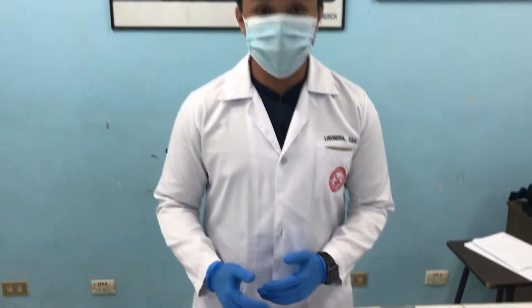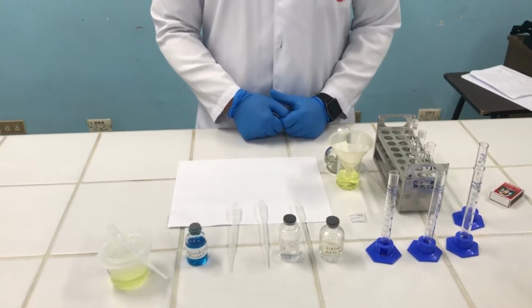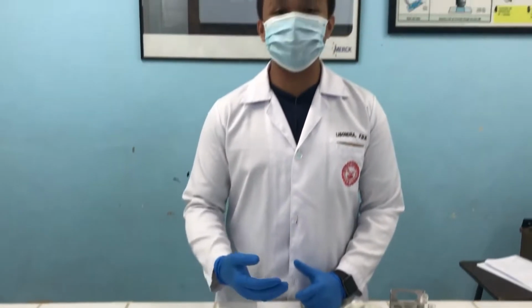For this video, we will be presenting the chemical analysis of protein and glucose. The first thing I will be doing is the test that won't use heat. The title of this activity is the sulfosalicylic acid test.